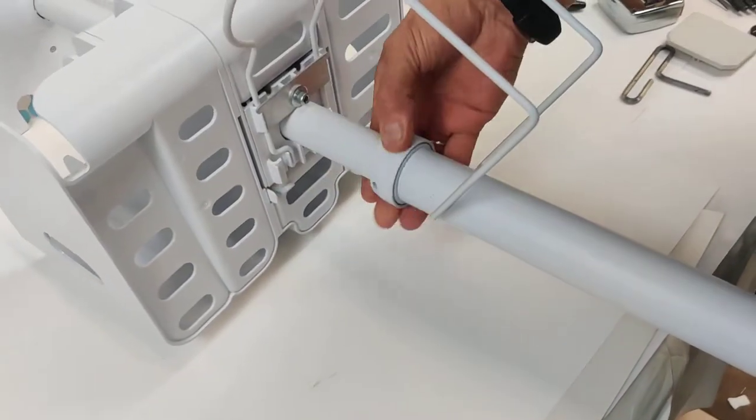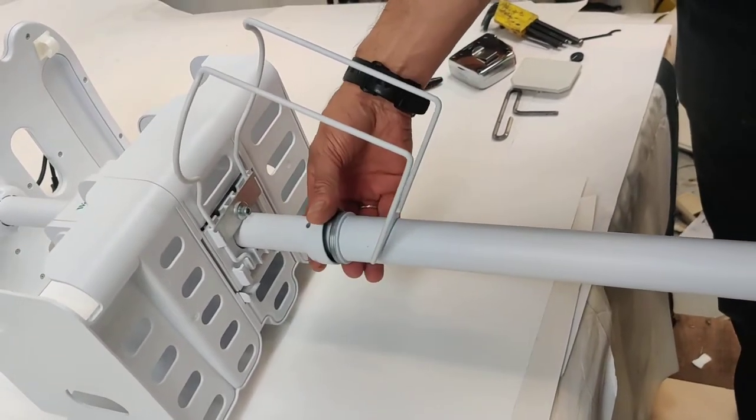That's it. You unscrew it, it's like that, all set.